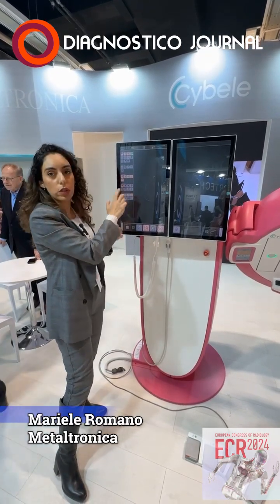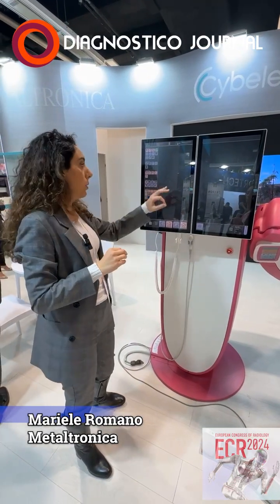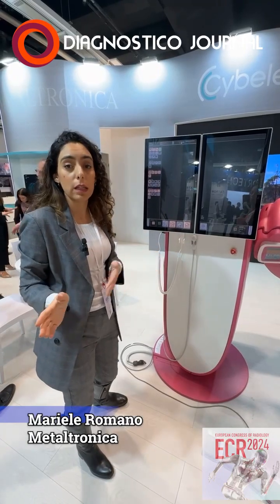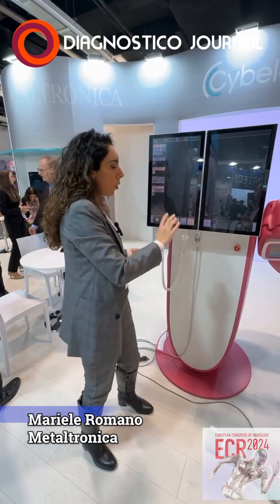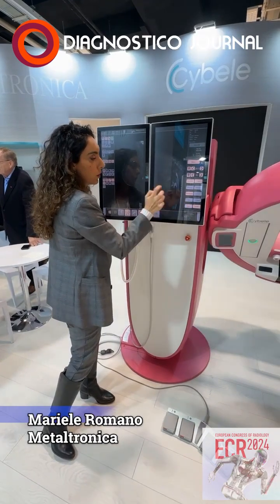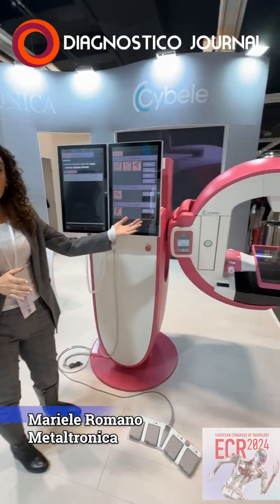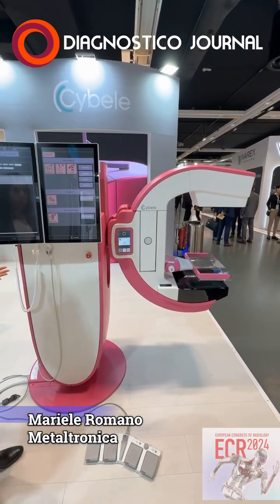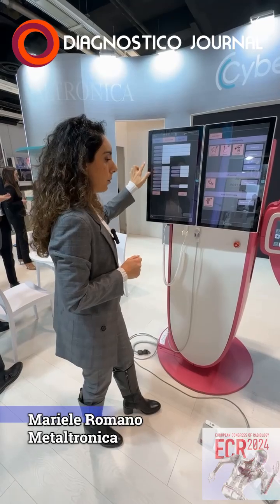If you want, you can also adjust windowing, mirroring, or make some annotations or measurements, and then send everything to the PACS, either as GSPS or with a screen capture. Once you're fine with your study, you just close it, you save, and everything is sent to the PACS. And the arm automatically goes to 0. The other option is for biopsy.